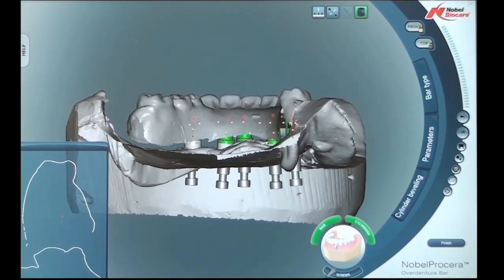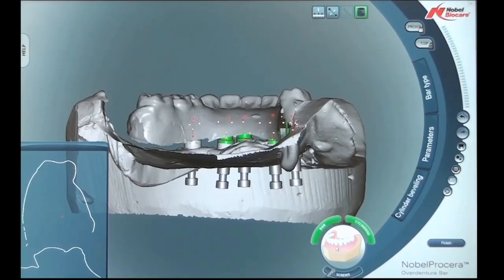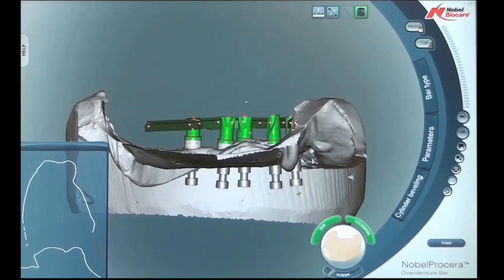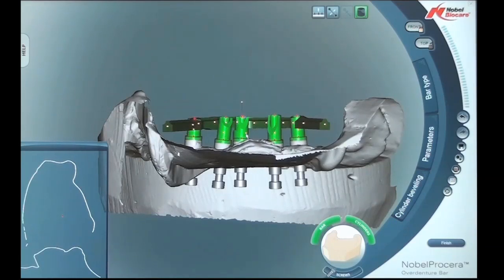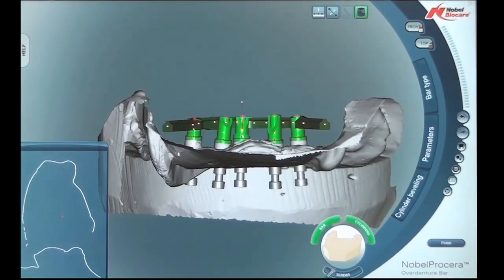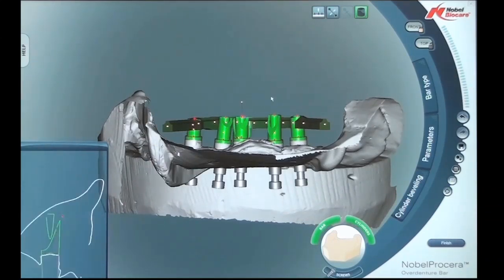We can click on the denture itself and convert it into a solid, or one more click will make it into transparent mode. The transparent mode is very helpful to see the actual position of the teeth relative to the bar. You can also just click on the denture and remove it entirely to just have the bar by itself. Here I'm manipulating one cylinder and the bevel effect — we can rotate that cylinder 360 degrees to create the ideal lingual position.